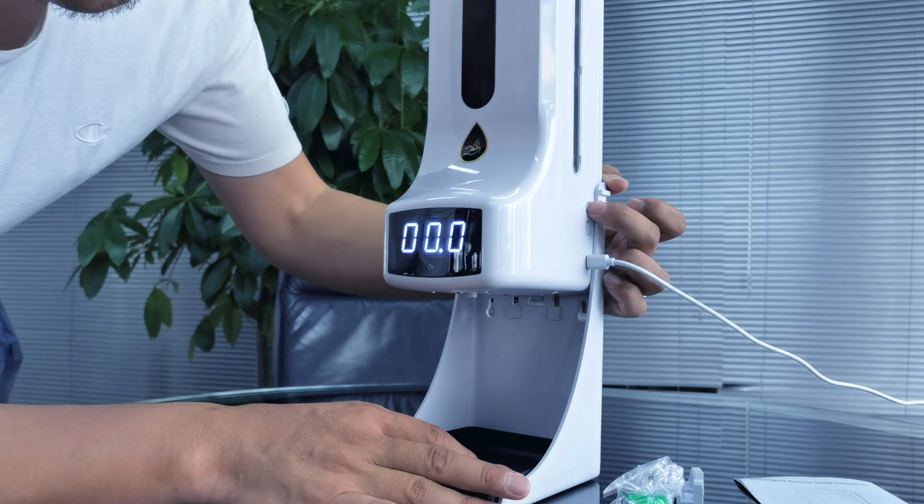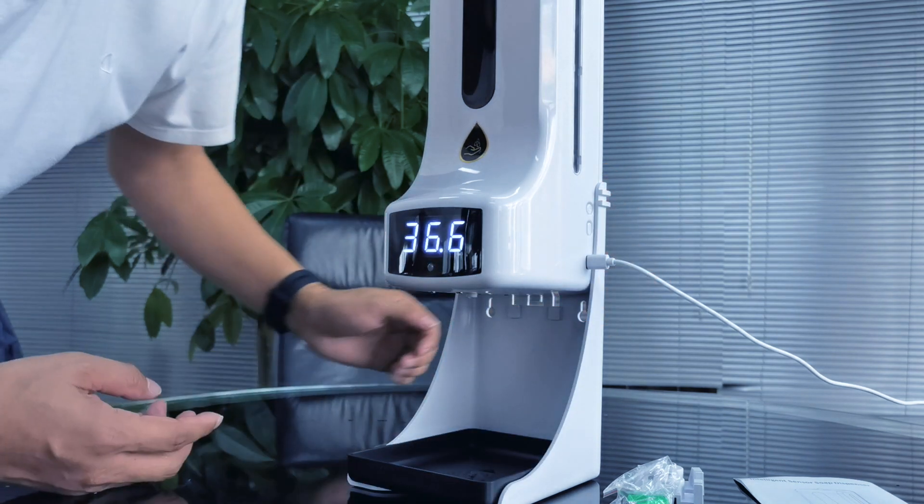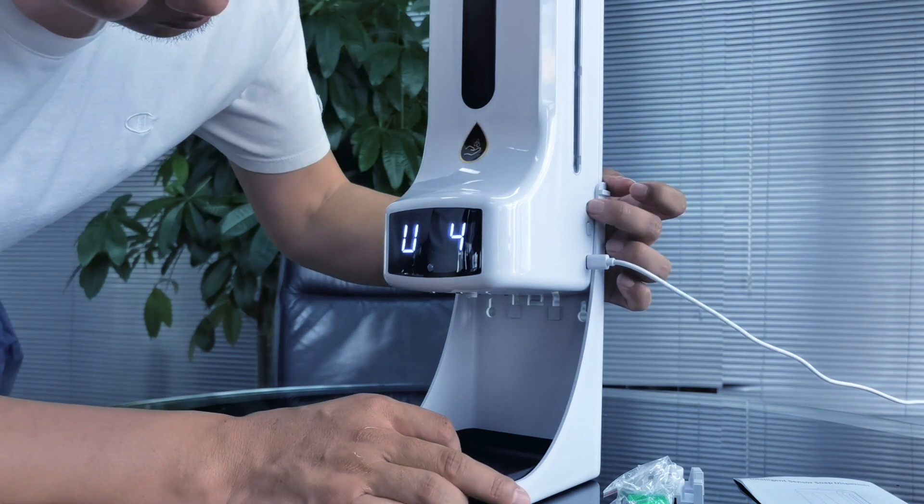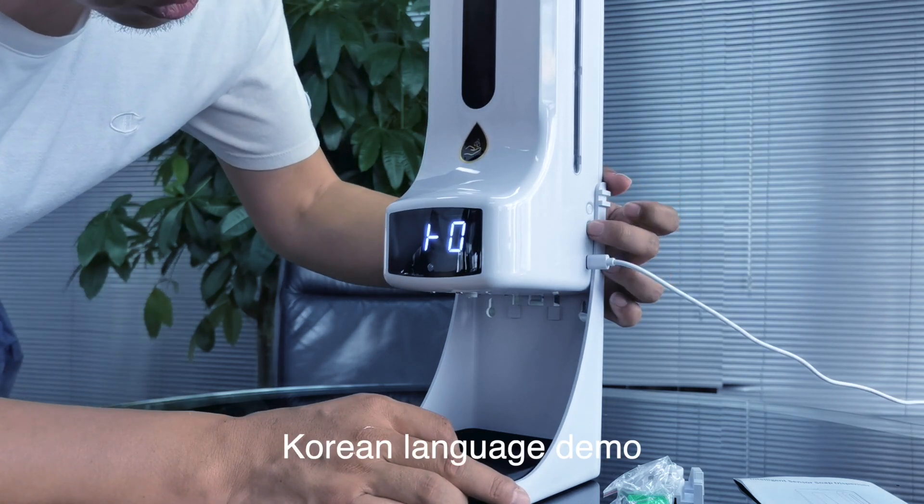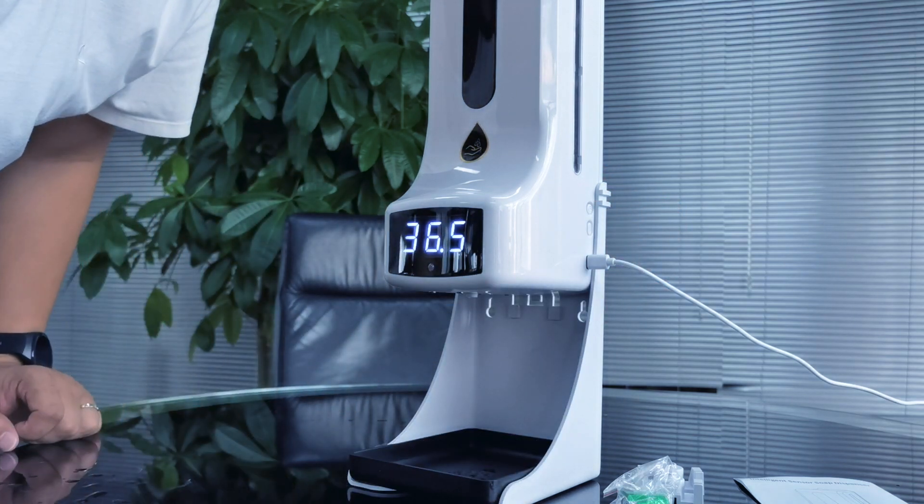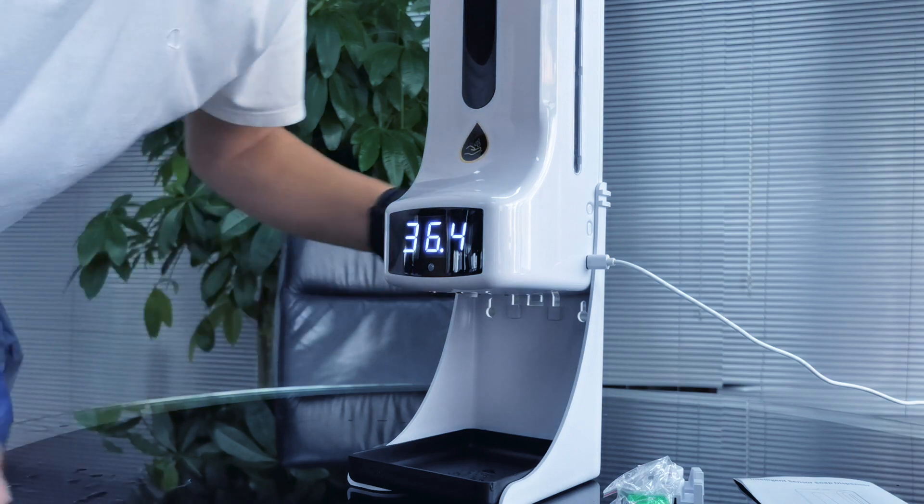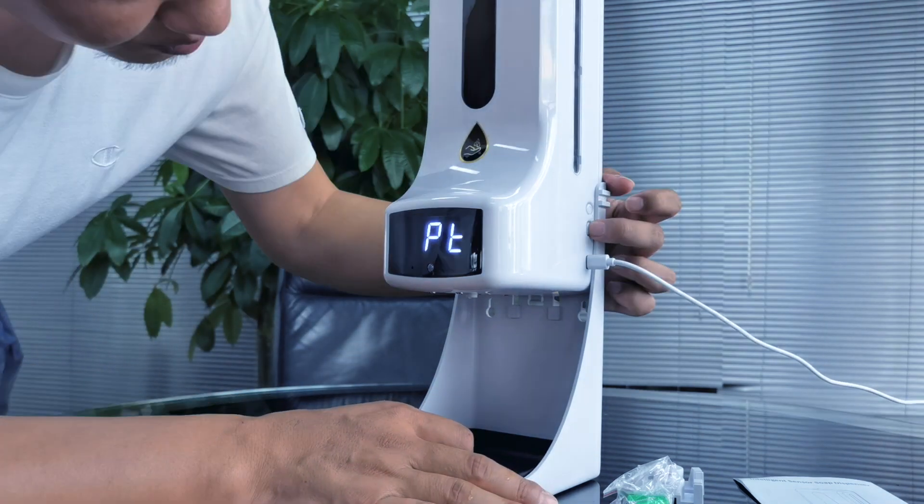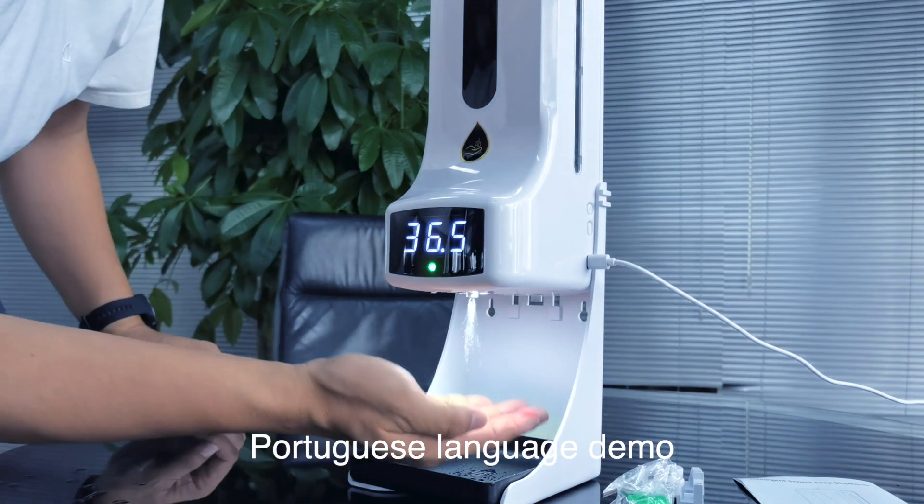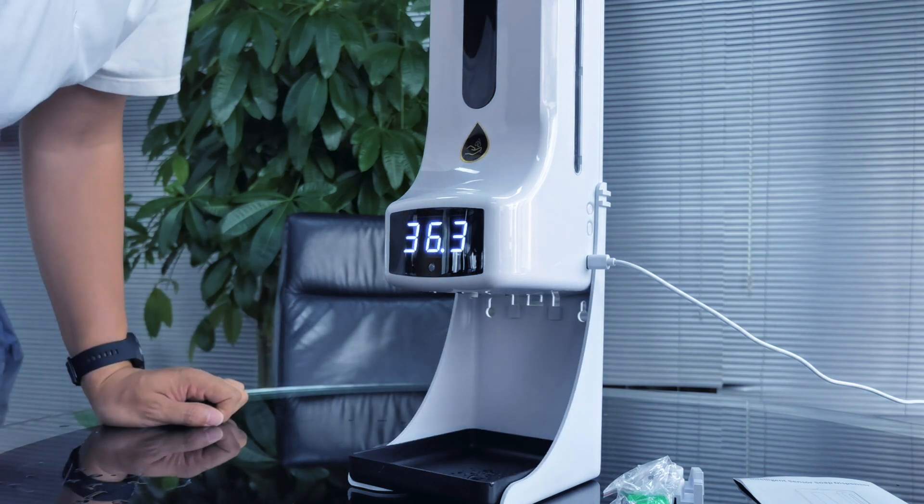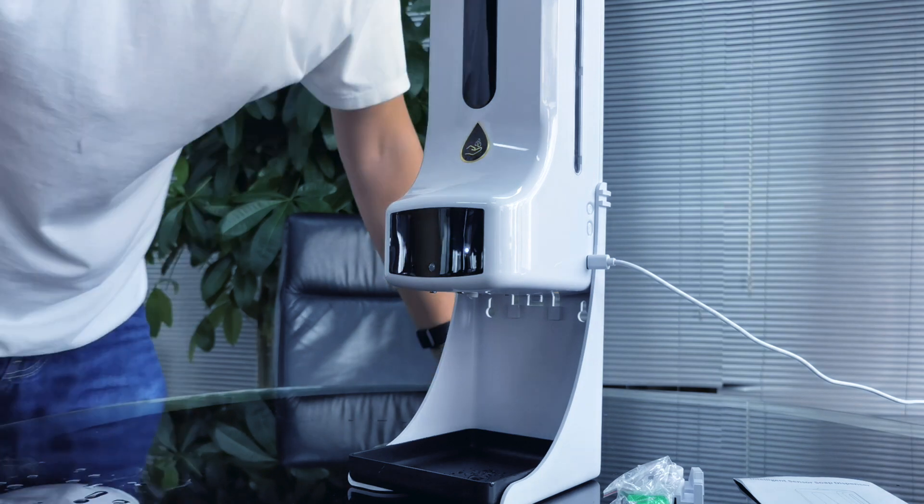So you can change the language and show you. Let's go to Korea. I'll show you another one, Portuguese. Let's see. Yeah. This is the usage of the K9 Pro.